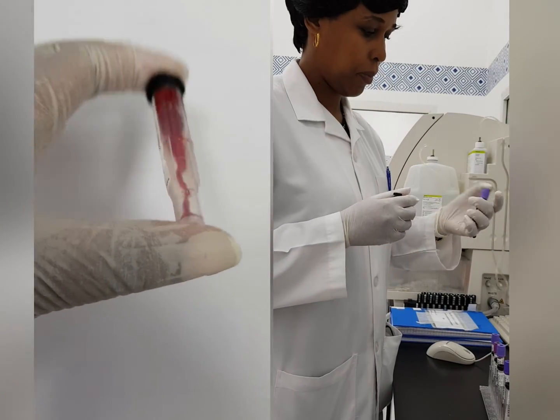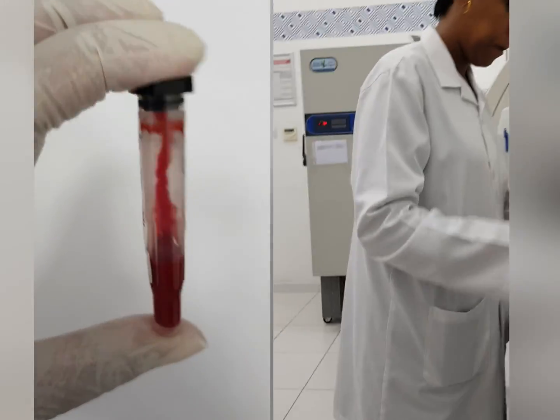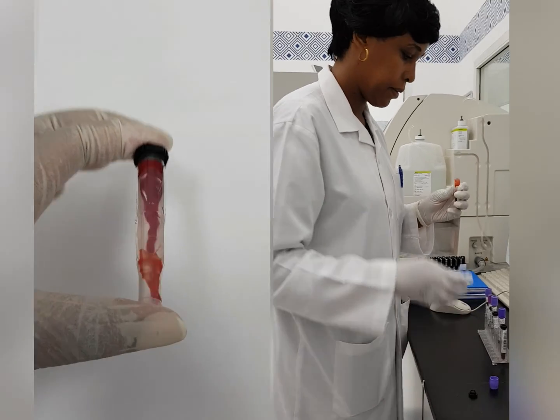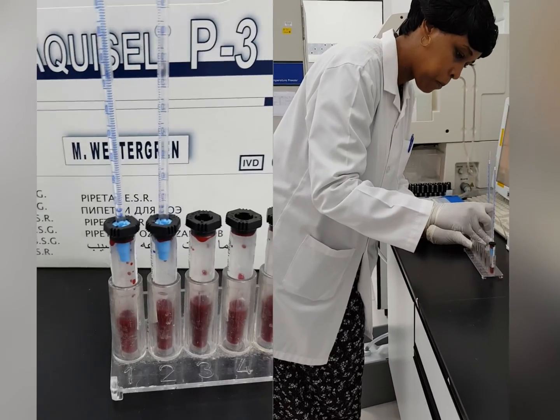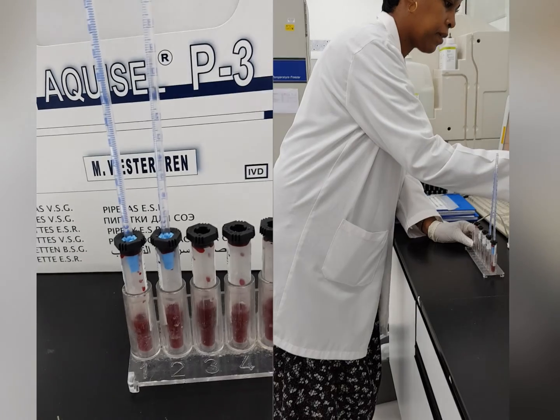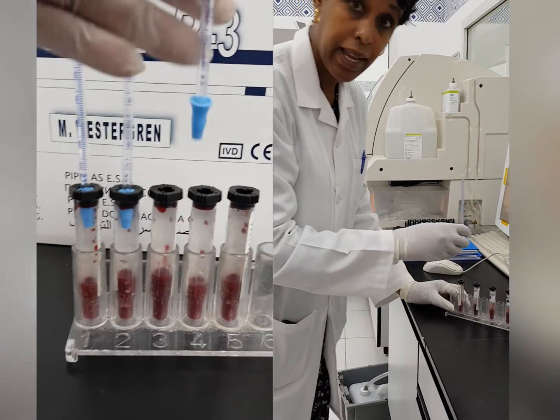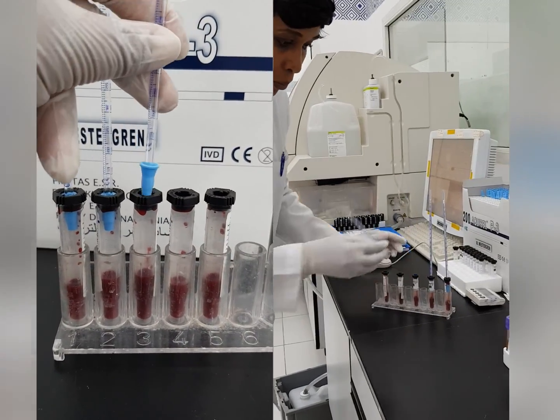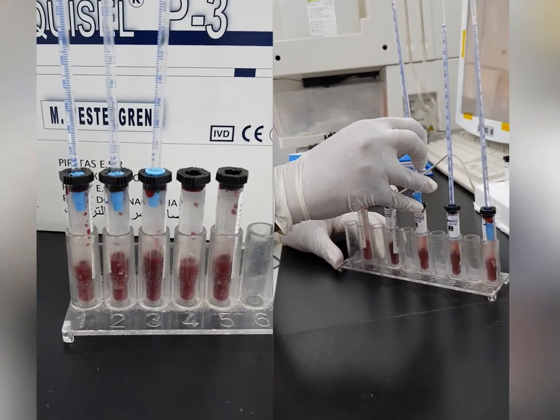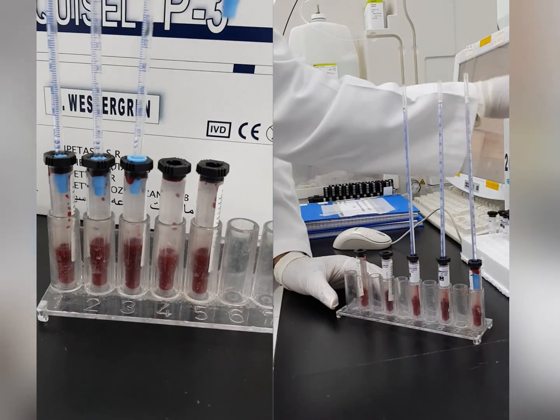Pour approximately 1 mL of EDTA anticoagulated blood into a reservoir that contains sodium citrate anticoagulant. Replace the cap and mix the blood and anticoagulant by inverting the tube about 8 times. You may then draw the blood into the Westergren tube up to the zero mark, avoiding air bubbles.